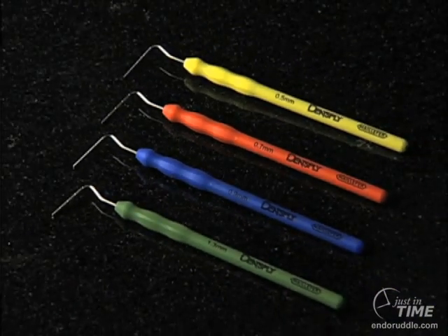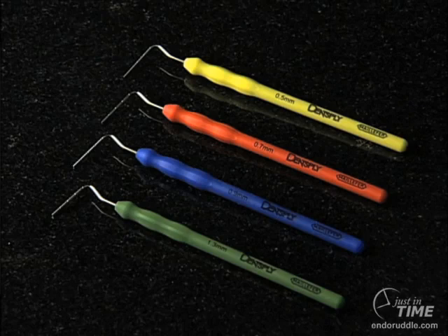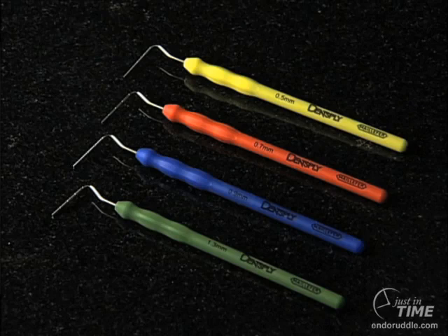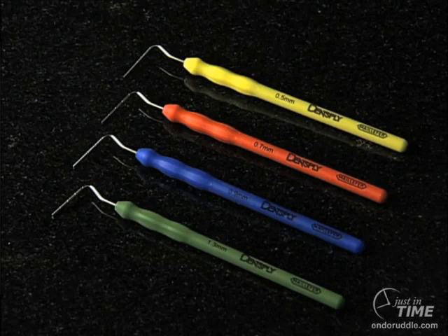We're going to need some pluggers. These are the Calamus pluggers, made to compress thermally softened gutta percha into the root canal space. In this instance we have four pluggers whose working end diameters are 0.5 millimeters, 0.7, 0.9, and 1.3 millimeters. Typically in any given canal we'll choose two or three pluggers to effectively accomplish the task. Notice that the working ends of the pluggers have convenient gradations at 5, 10, 15, and 20 millimeters.